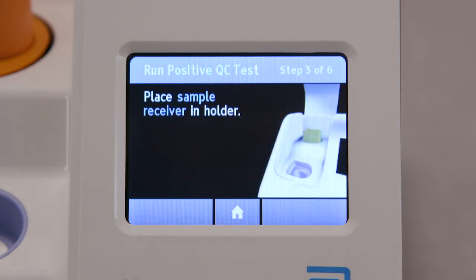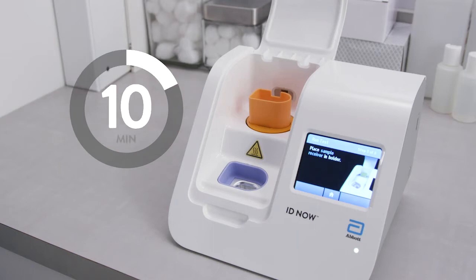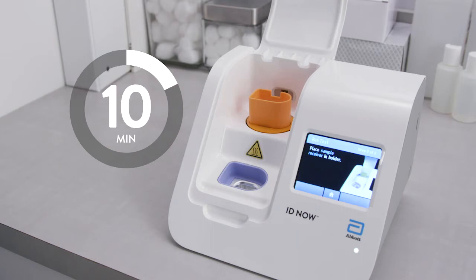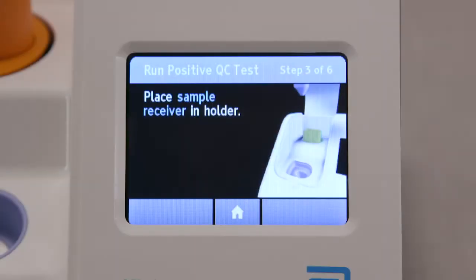Once the test base has been placed in the holder, you will have 10 minutes to confirm the test. If the test is not confirmed within 10 minutes, the instrument will time out and the test base must be removed and discarded.